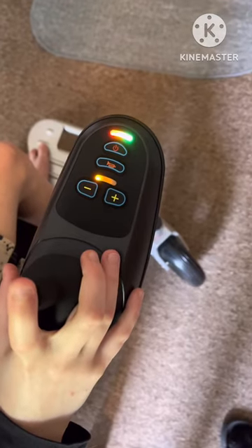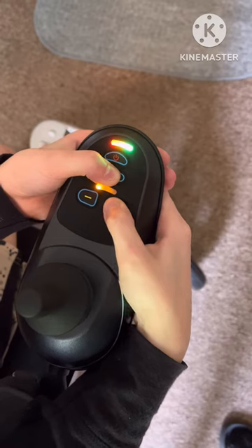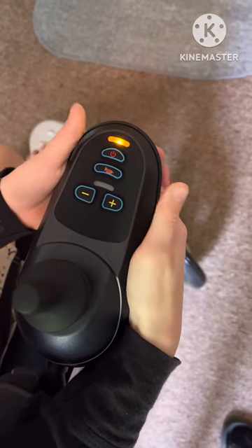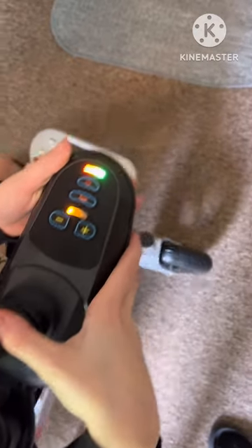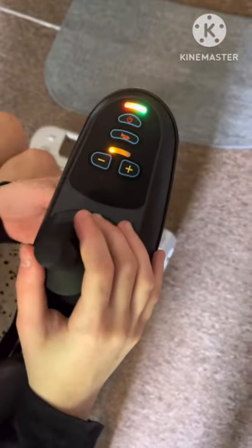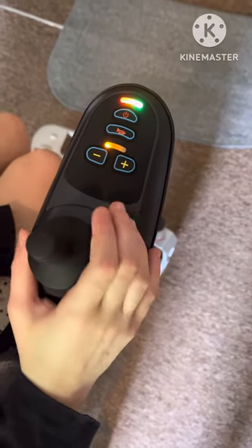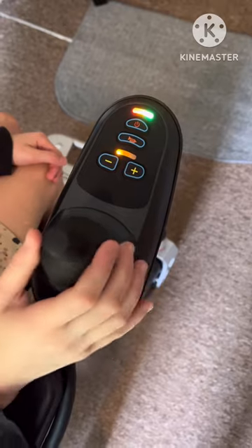Press the horn button and the positive at the same time until the lights change, then take your hands off. Now push the horn again before the lights go back to normal — you have about two seconds to hit that horn button again.